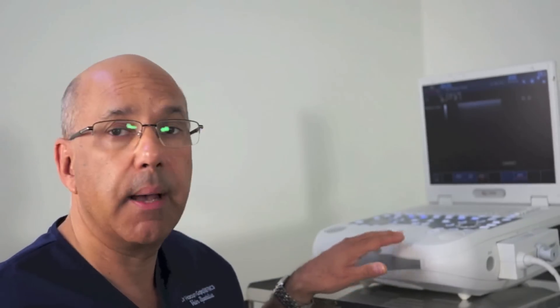It's very important that we use duplex ultrasound to diagnose vein problems. Now I've got here a state-of-the-art ultrasound machine. It is portable. Not many years ago these ultrasound machines were in hospitals on wheels, moved around in elevators and lifts, but now we've got these portable ultrasound machines that look very much like a laptop, and they do everything we need to look at veins and blood vessels.